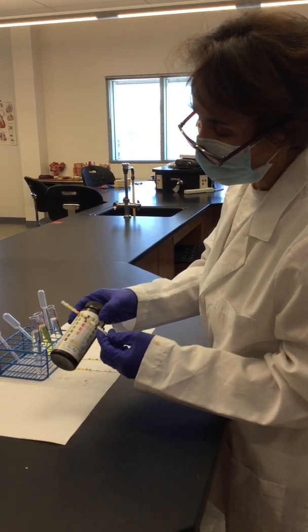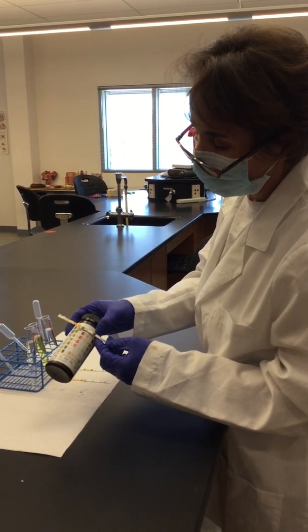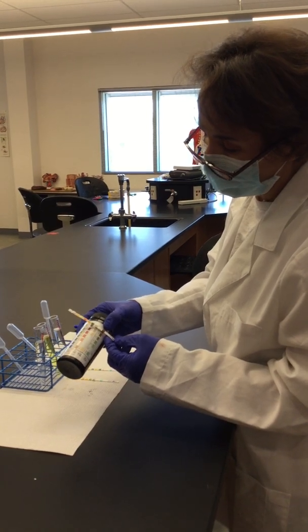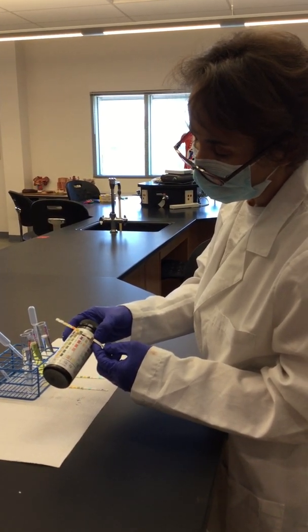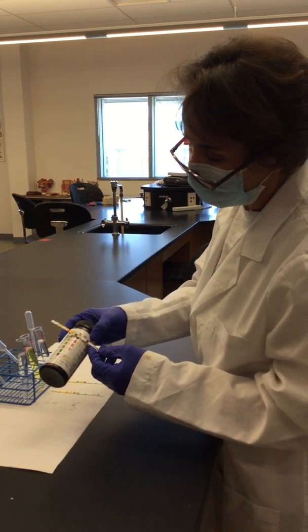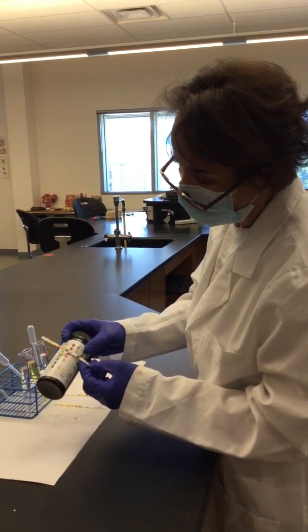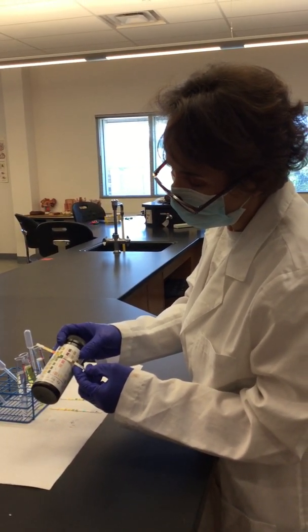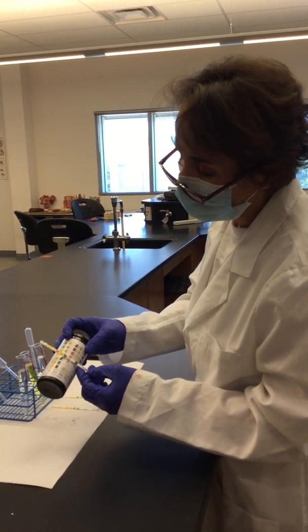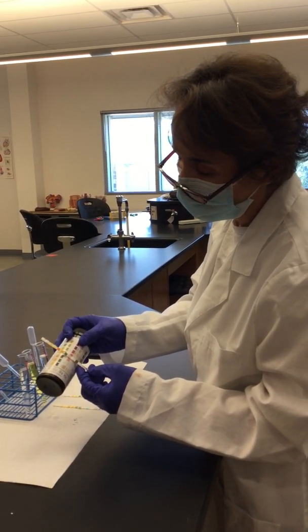So this is possible because since it has a lot of glucose in it, you expect that the sample is coming from a person who has ketoacidosis. So well, actually, never mind. This is for this. So this is the third strip, so it will go up to here. So that's for ketones. So it has traces. And at some point, yes, you can expect some traces of ketones in someone who has diabetes.